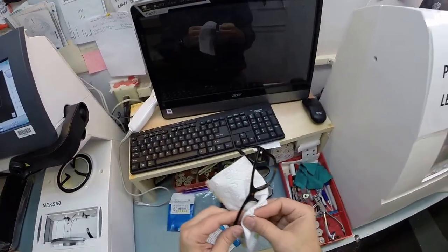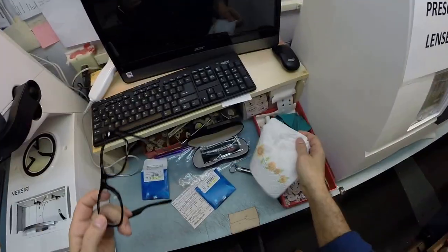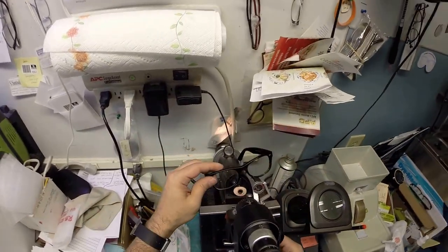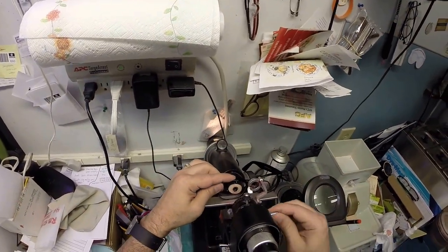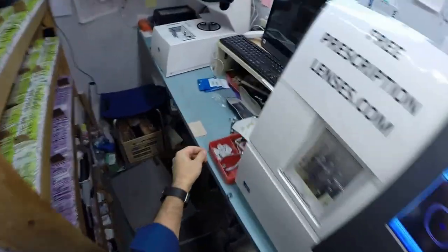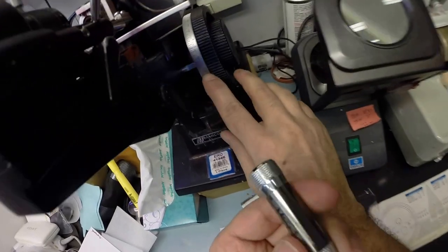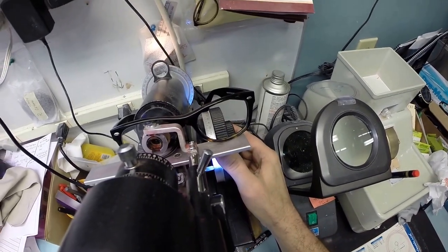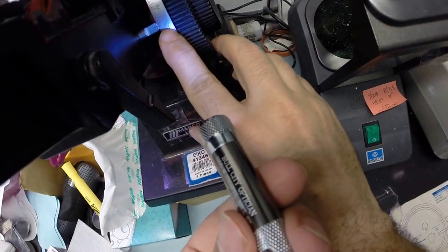I'm going to take this block off. It is no longer needed. I'm gonna dry your lens off, leaving that white dot you can barely see right there. I'm going to check the prescription in the right eye. We're still at 100. I'm going to put the lens in over that white spot and I'm getting minus 2.75, which is one tick mark away from three. I'm going to check your astigmatism correction and we're at minus 3.50.